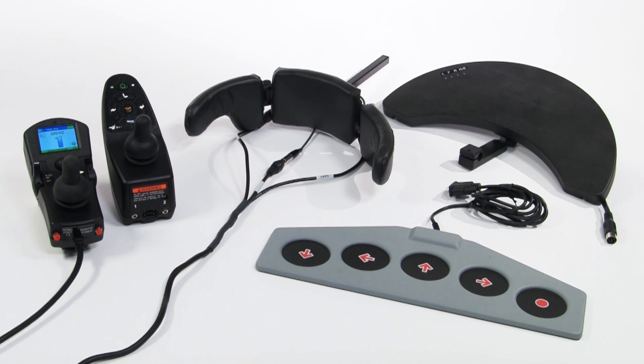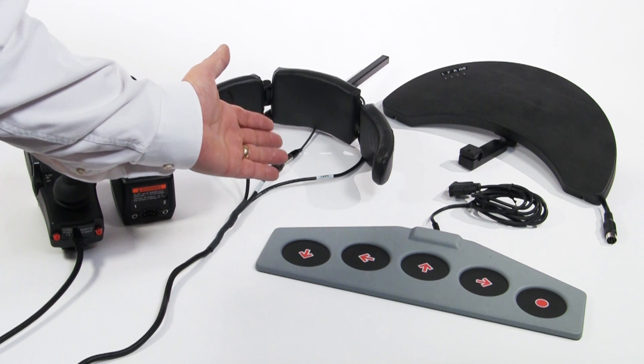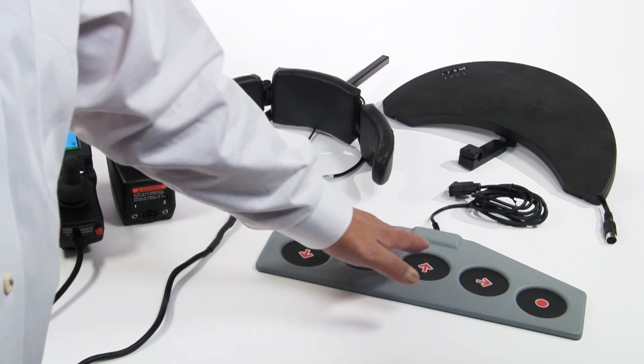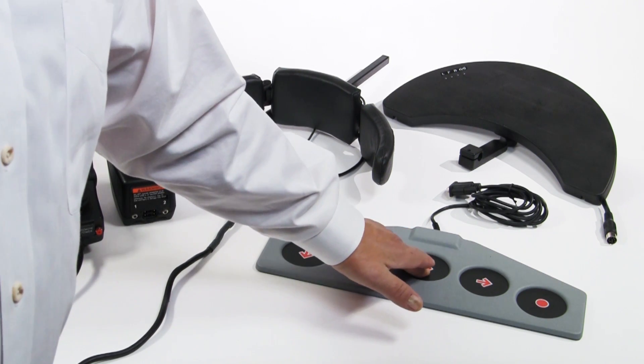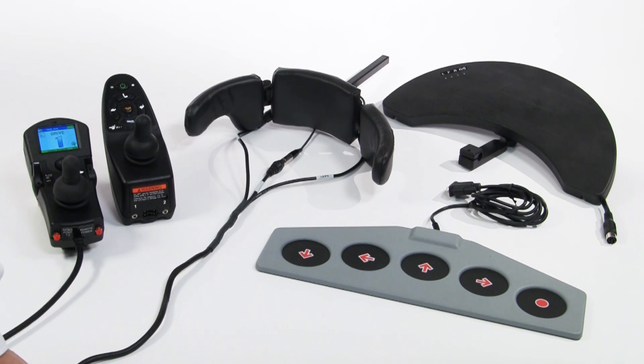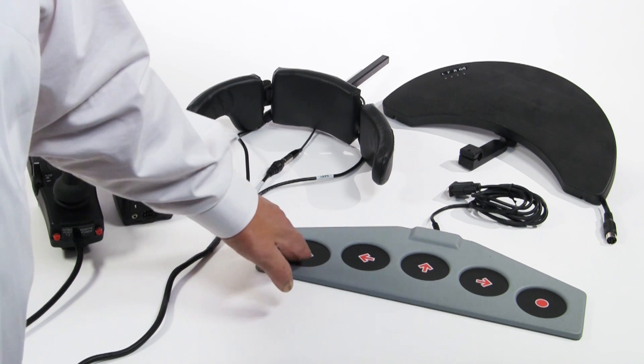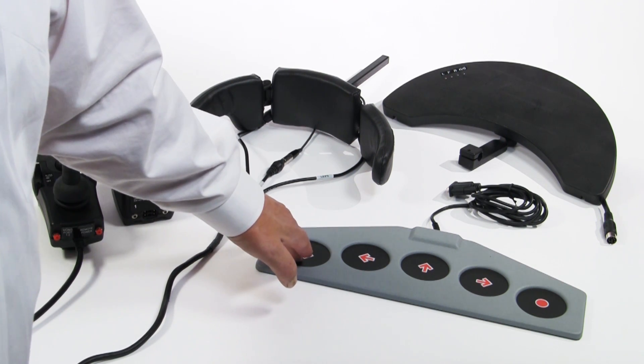A digital driver control is simply a switch, similar to a car horn — it's either on or it's off. Driving in any direction is either on or off when that switch is activated.